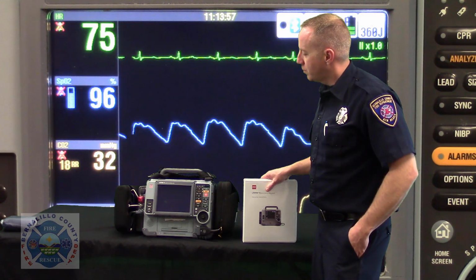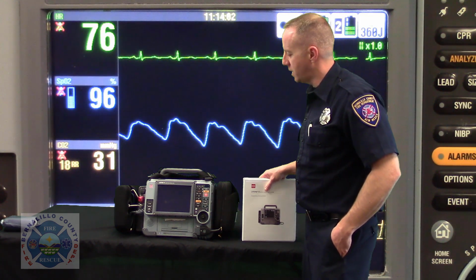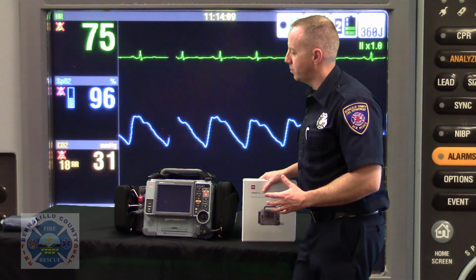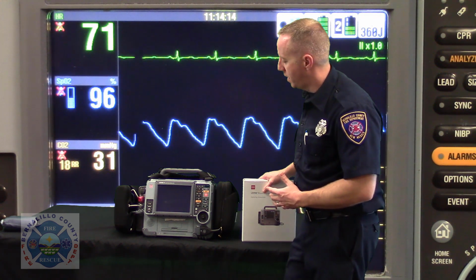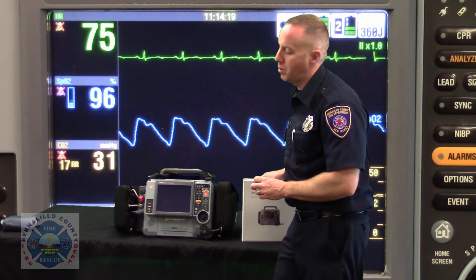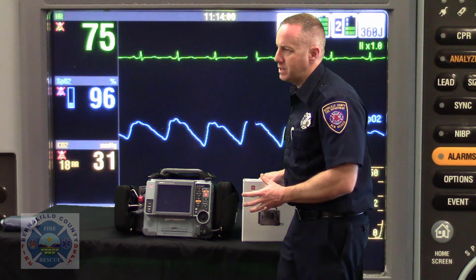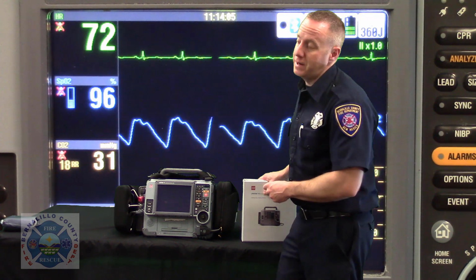So we're rolling out some additional training on the Lifepack15 and some of the user options and how you could really make this device work well for you to bolster your patient assessment, and maybe some of the functionalities of the monitor that are maybe not being utilized by you for your assessment right now that you might actually want to incorporate as part of your clinical assessment. And also kind of point out some of the features on the monitor that are obvious, but maybe not so obvious as to why the monitor is even configured the way that it is.